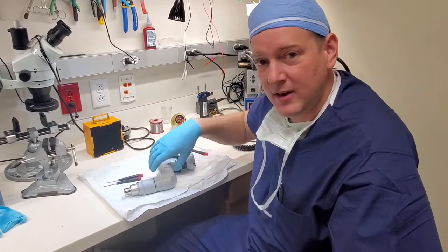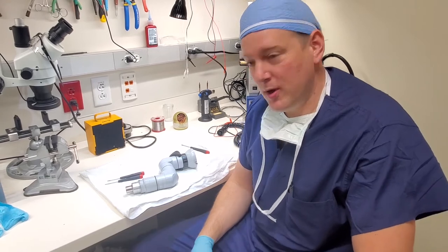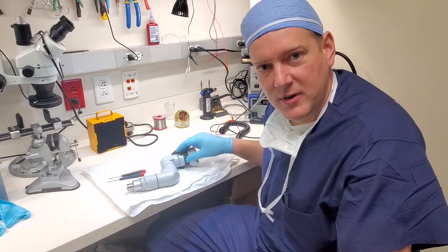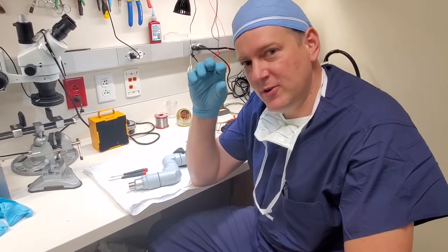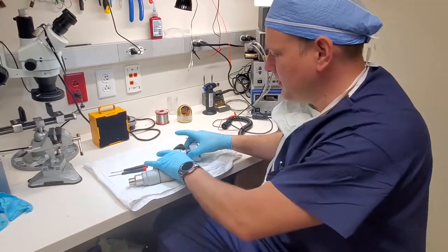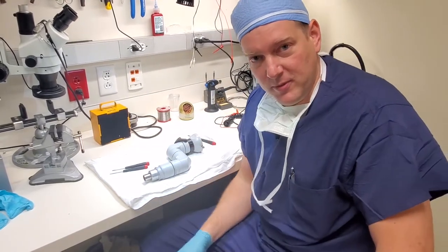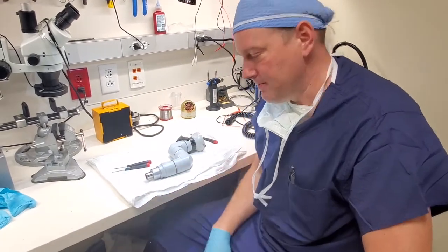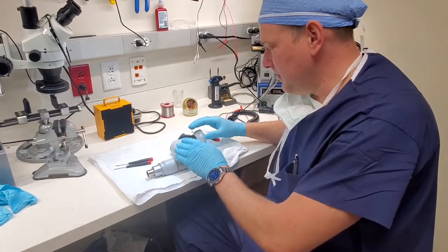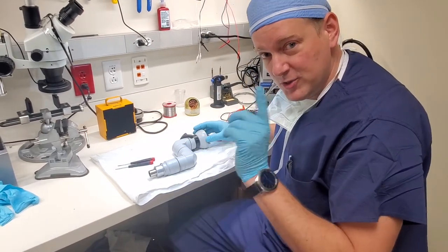Now this guy here has a problem with one of the prisms up near the head. It's got a slight blur on one of the eyes and when you rotate the prism using this ring right here, it migrates from left eye to right eye and vice versa. It's definitely the exit prism. We're going to pull it apart and show you guys how to do it.